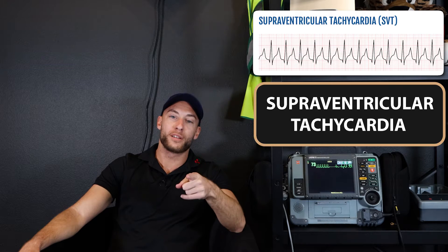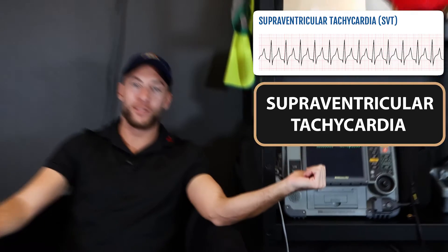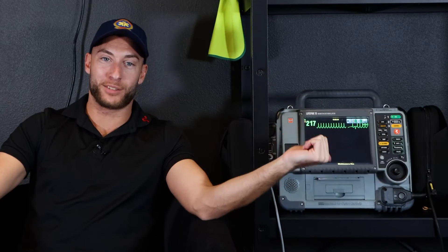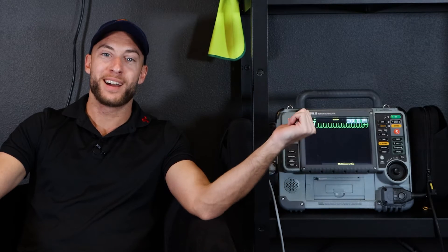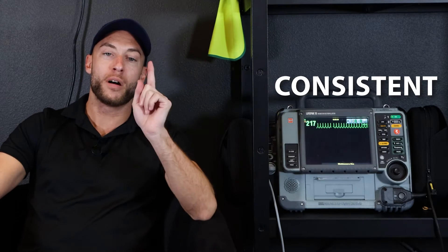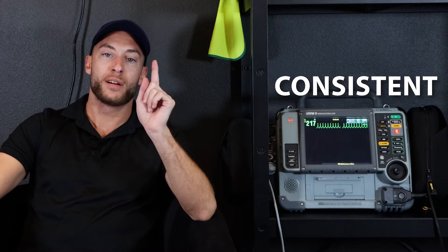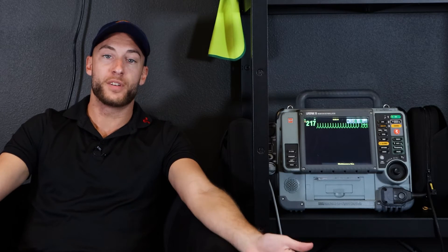Supraventricular tachycardia. See it right there? That's what I want to show you — right there, a consistent supraventricular tachycardia. SVT.